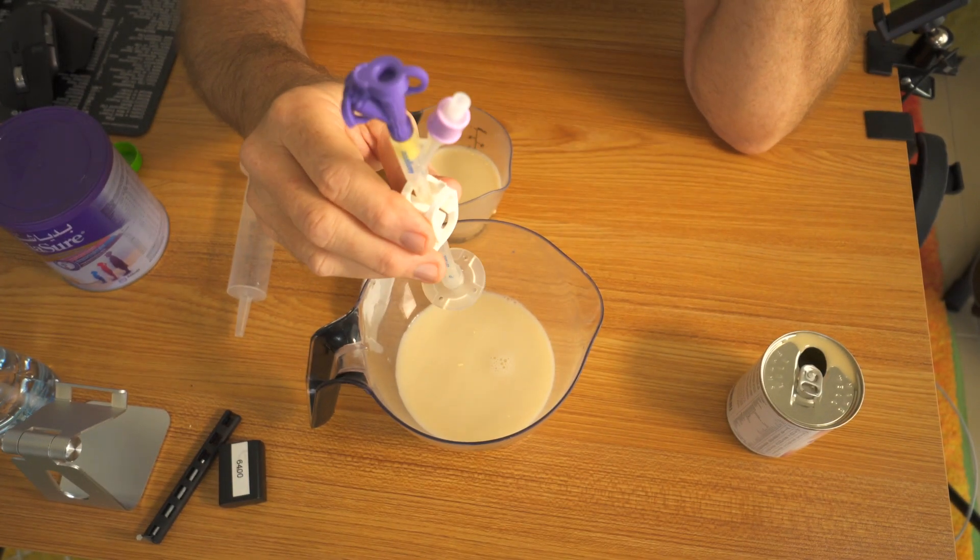Your feed tube's now complete and you've finished feeding yourself. That's it, basically how you use a feeding tube, the PEG tube.